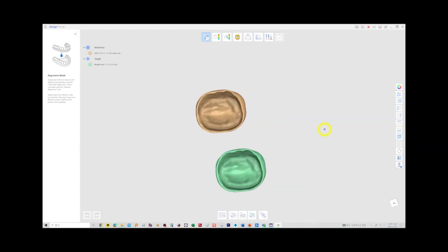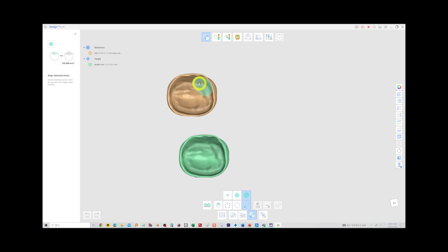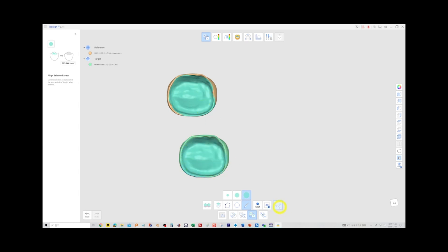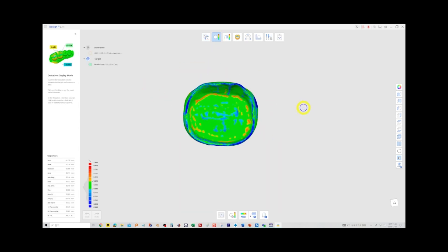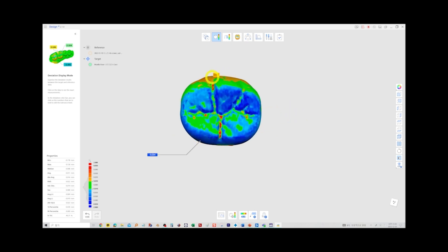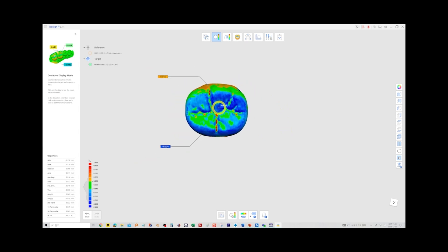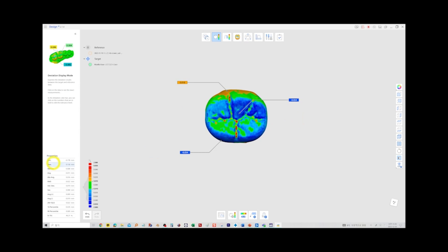To see how much the inner and outer surfaces differ, we need to align based on the inner surface. Starting with the alignment mode, we can sort by the inside using the align by selected area only feature. Go to deviation display mode and confirm a good inner alignment. Flip it over and read the number of occlusal plane errors — half of this value is what you need to calibrate your appliance with.